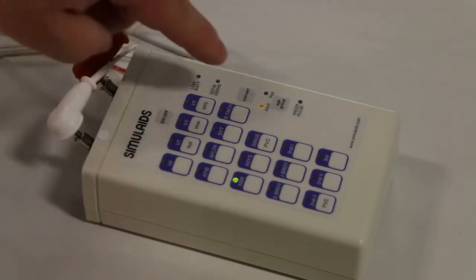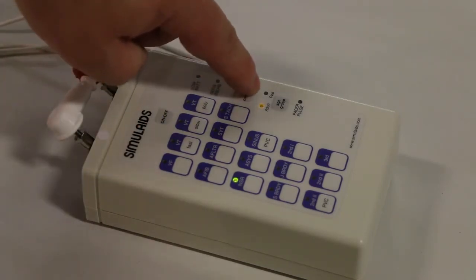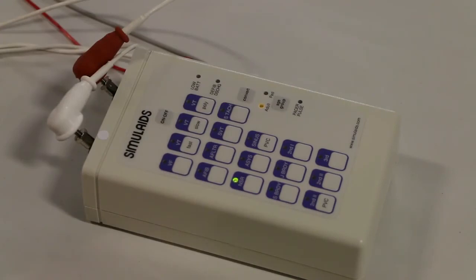The unit has age selection, defibrillation conversion, and low battery indicator.